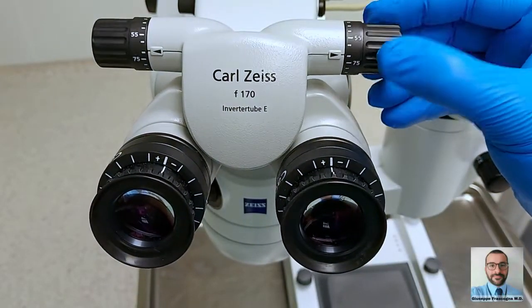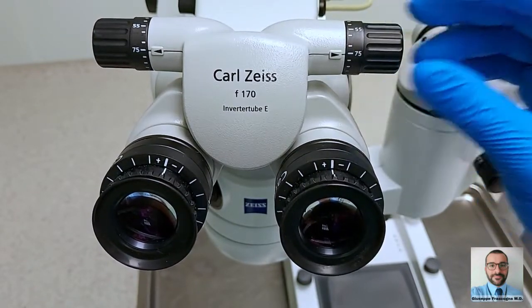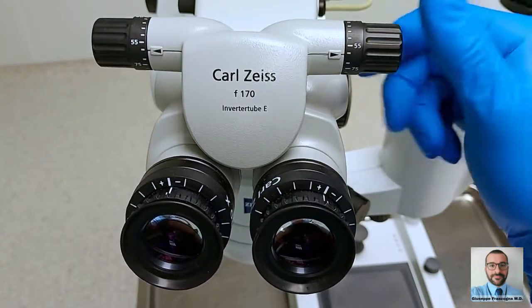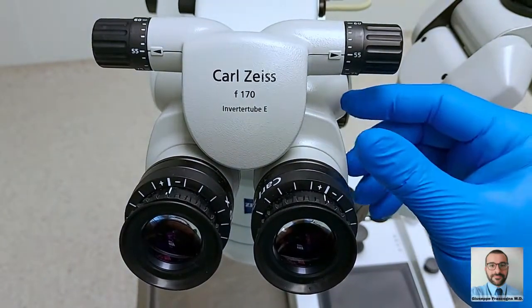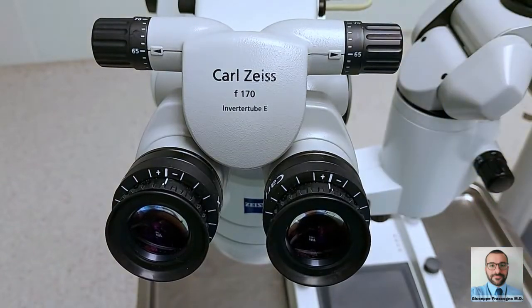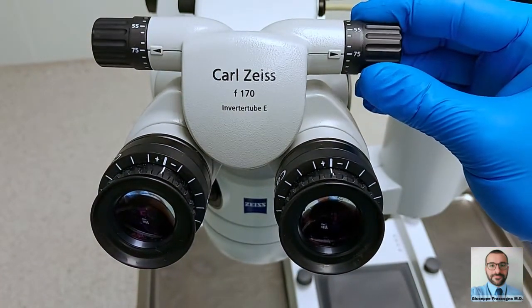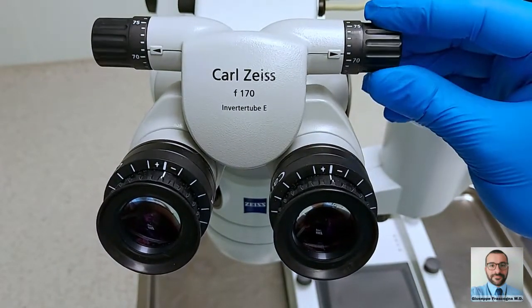You can adjust the interpupillary distance using the specific setting wheel. On higher values, it is impossible to get image fusion. Instead, on lower values, you could have stereopsis anyway, but only by engaging your own convergence capability with consequent early visual exhaustion. Therefore, during the IPD setting, it is better to start from a wider interpupillary distance and gradually lower it until getting image fusion over the whole field.